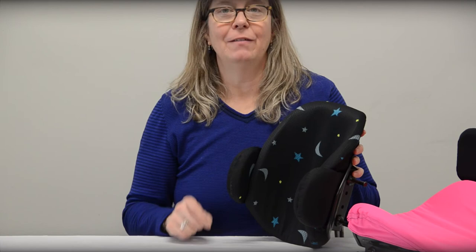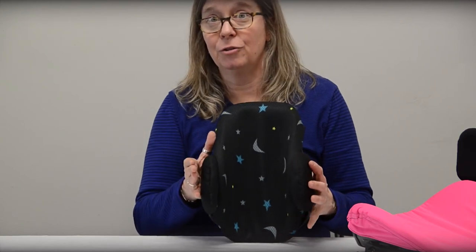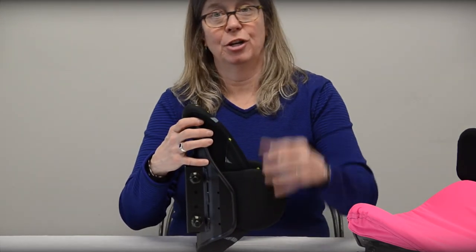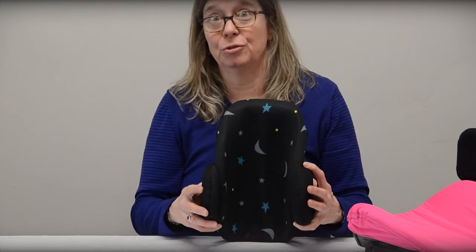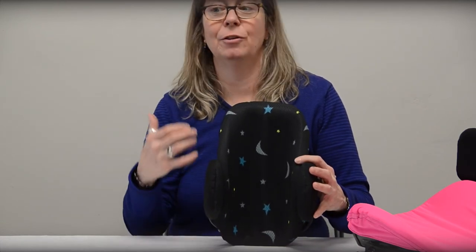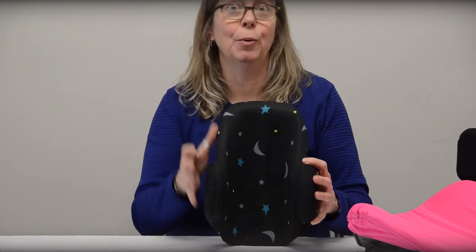The Matrix Mini back also has the option for an additional lateral extension. These are static and allow for a little bit of increased depth of contour — for example, if a consumer needs a little bit more lateral thoracic stability. They are not adjustable in height, so it's really about giving more lateral thoracic support, not offsetting for scoliosis. The nice thing is if you start with someone who requires more support and their balance improves, you can remove the extensions from both sides, or just one side if you need cueing on the other.